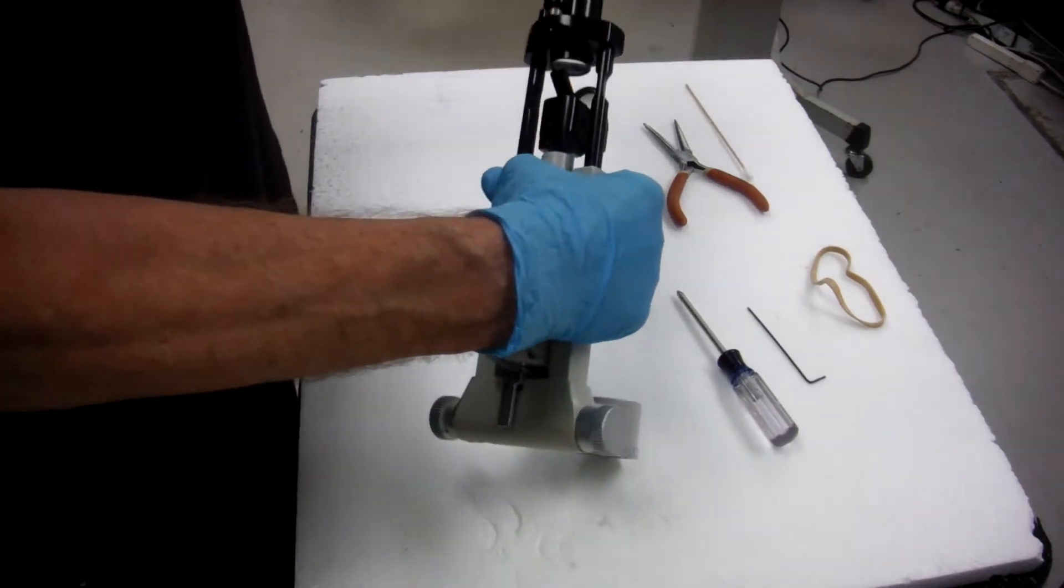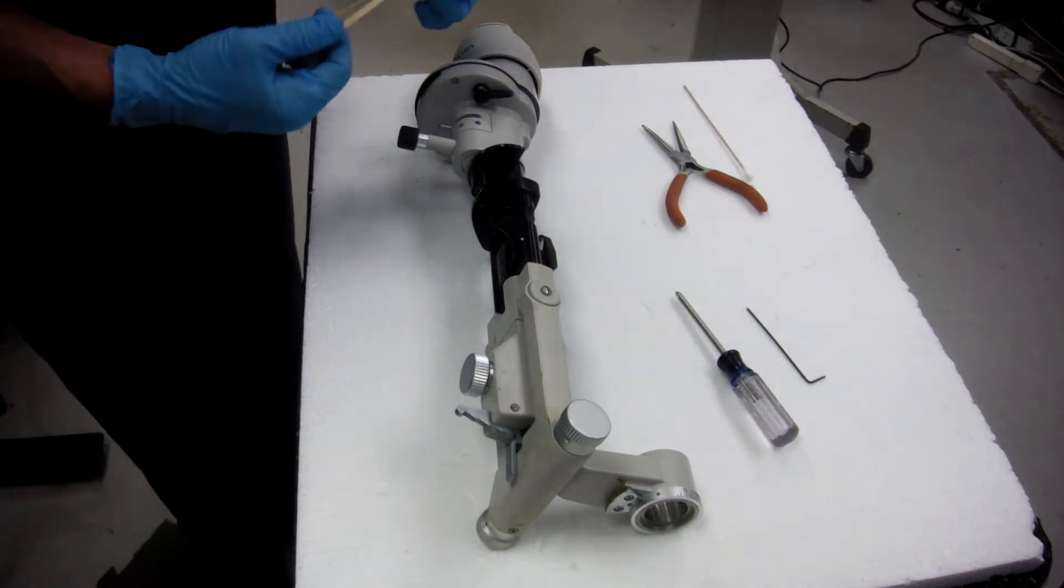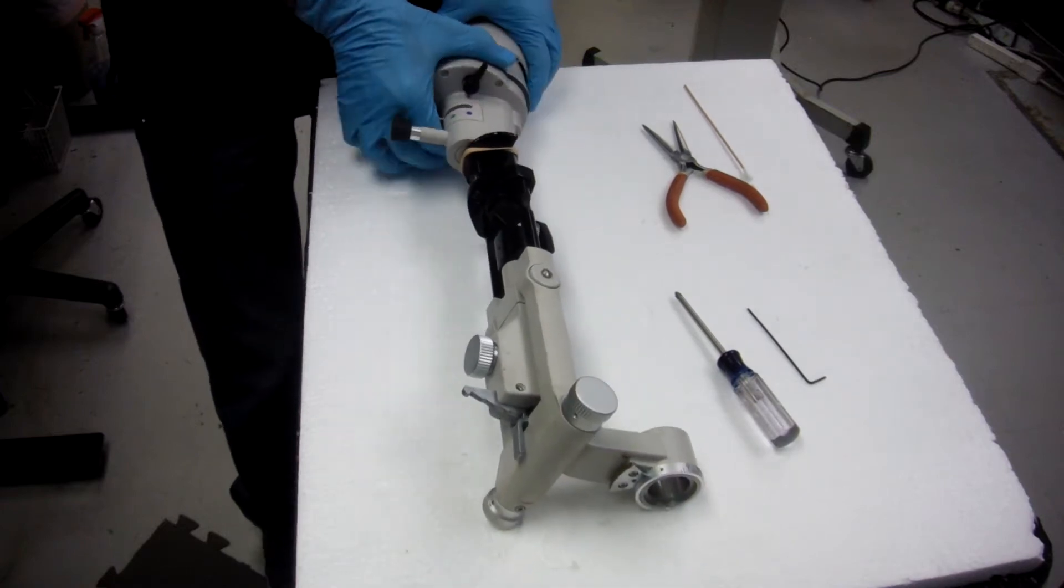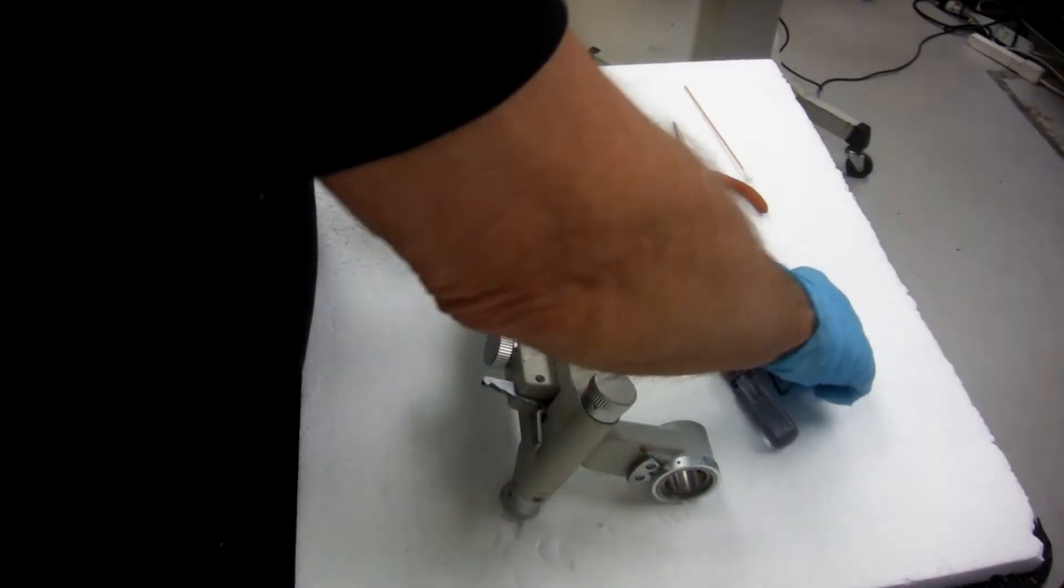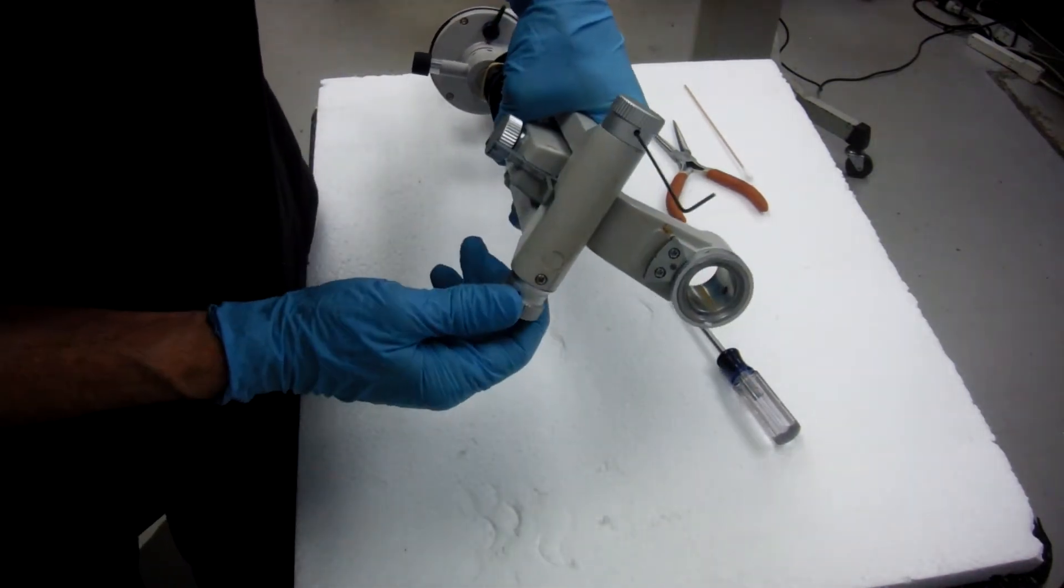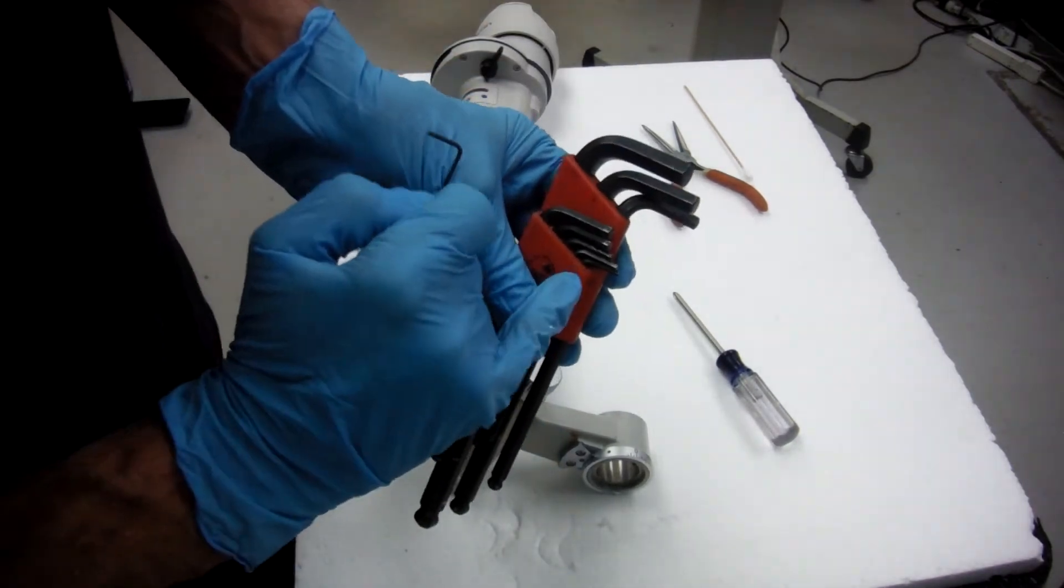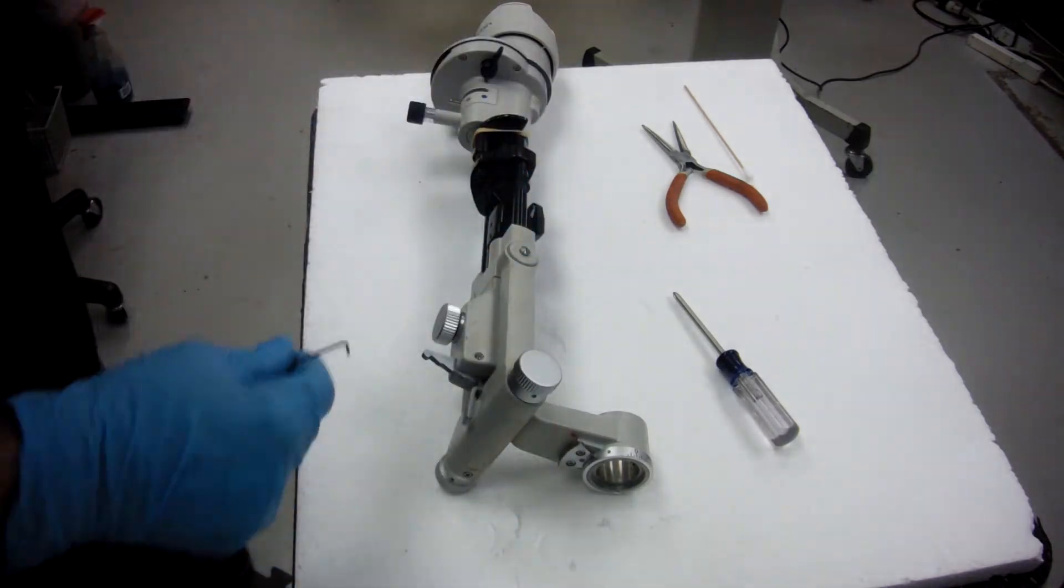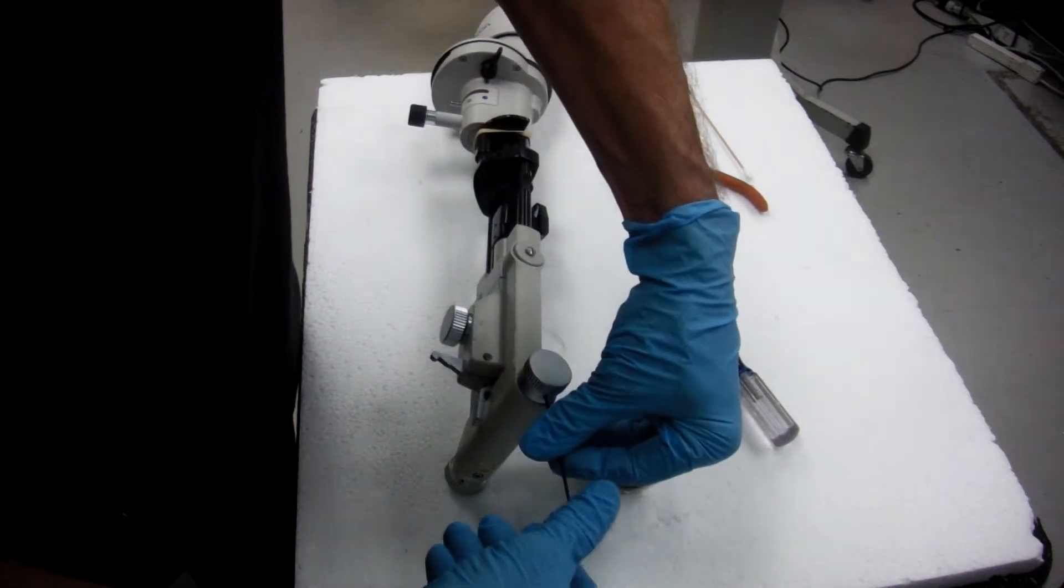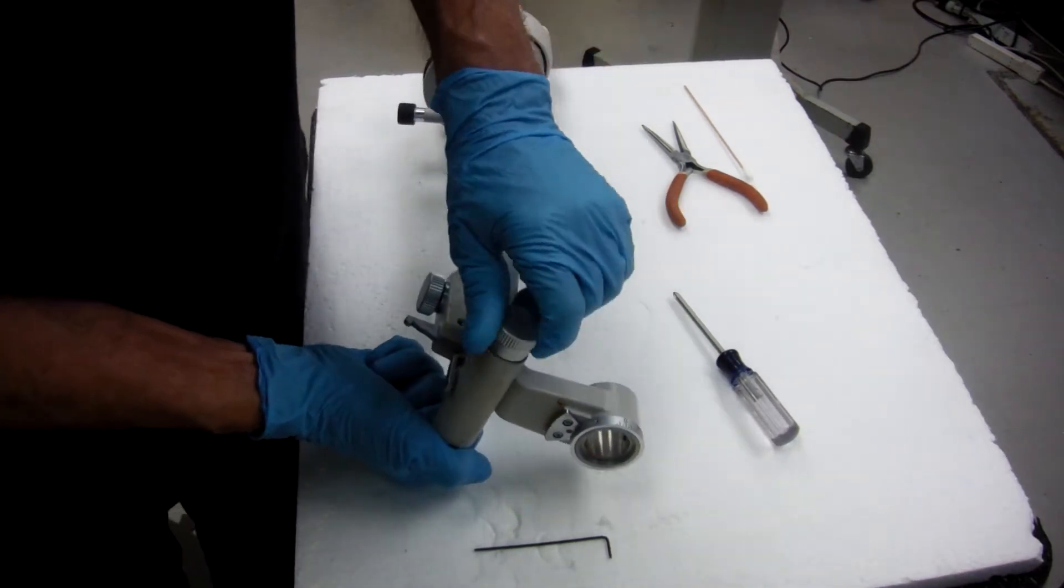Take off the tower, raise it up. I'll put a rubber band on here to keep it on the table. It's the smallest one on this set.